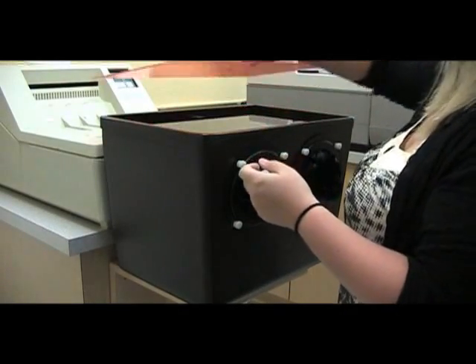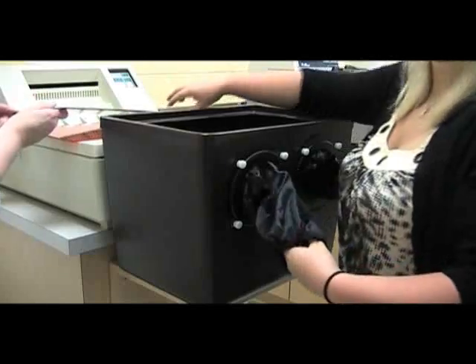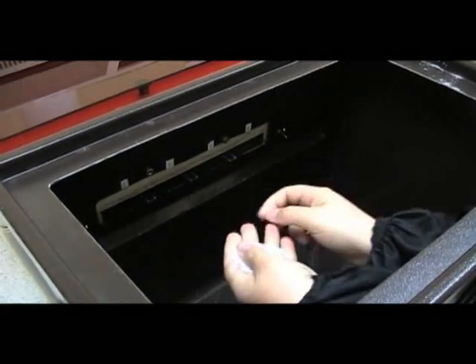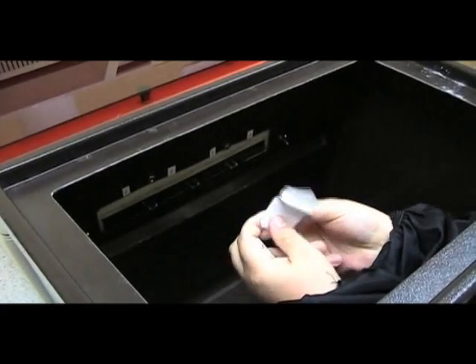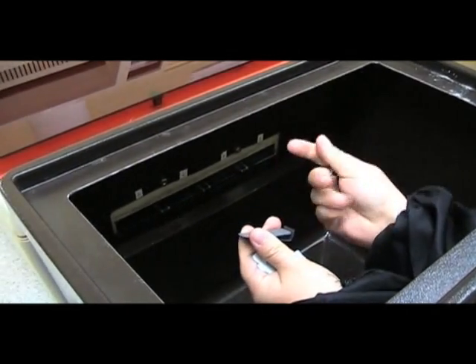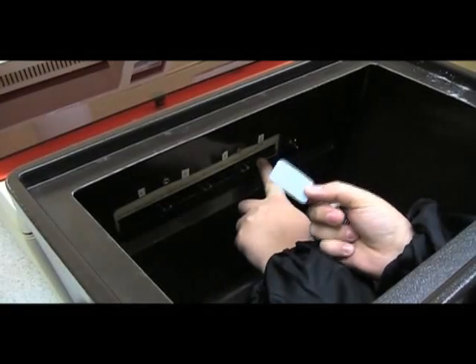I'm going to remove these just for demonstration purposes so that you can see inside. If you'd like to take a look here — you'd stick your hands through here and start off by opening your first film, collect the garbage and the lead foil, and take the film out. You'll notice there are several different slots — about four different slots.